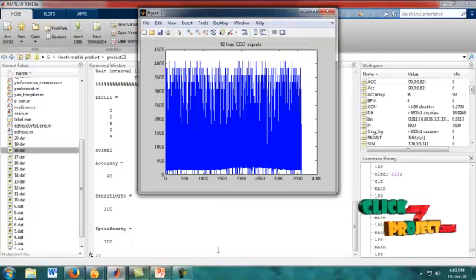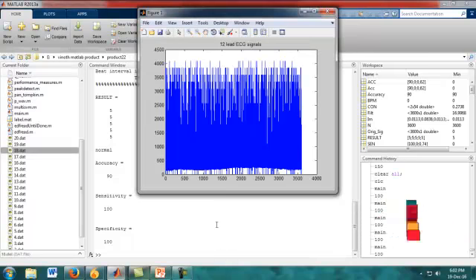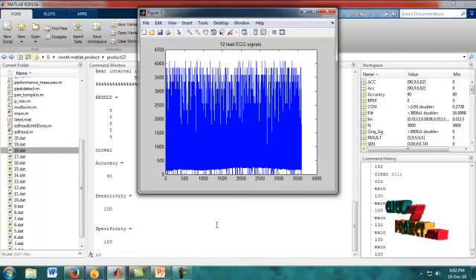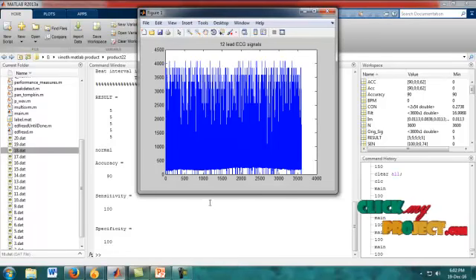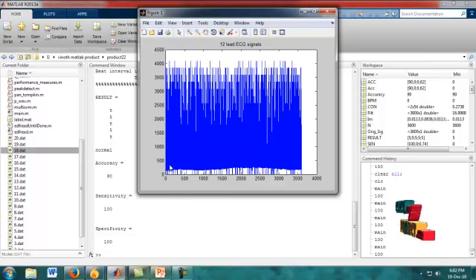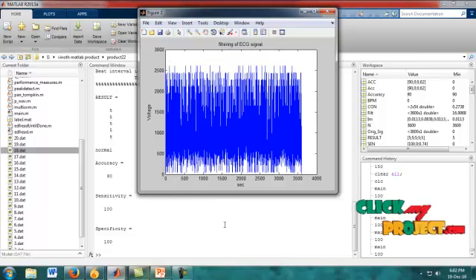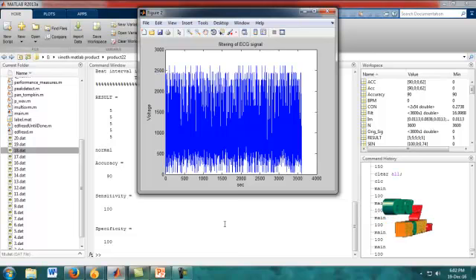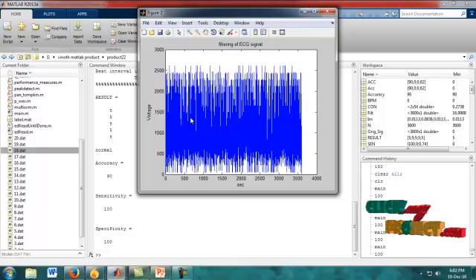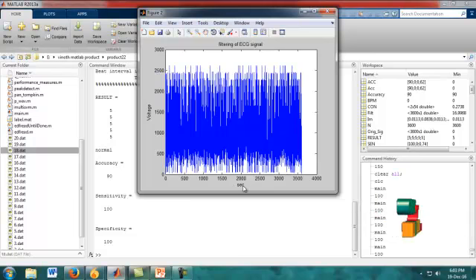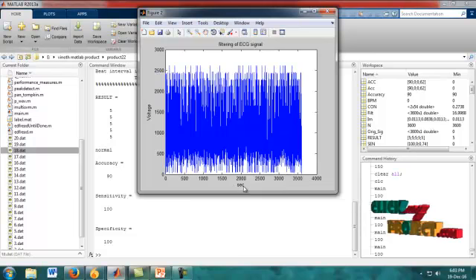Figure 1 shows the 12-lead ECG signal, which is our input signal. The X label shows time and Y label shows voltage. Figure 2 shows the filtering of the ECG signal, which is the filtered version of our input signal. The X label shows time in seconds and Y label shows voltage.